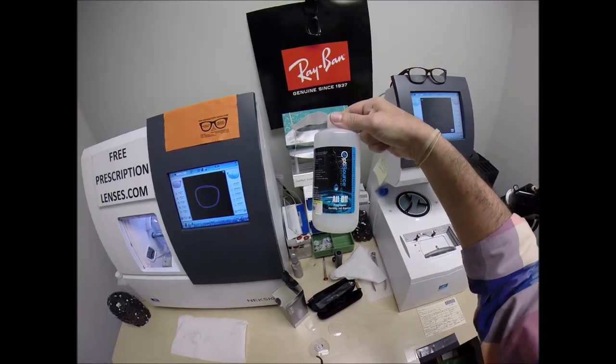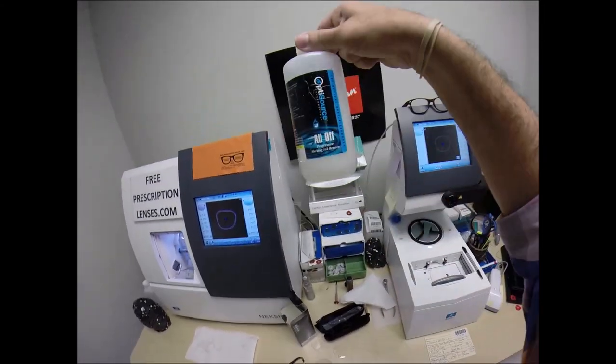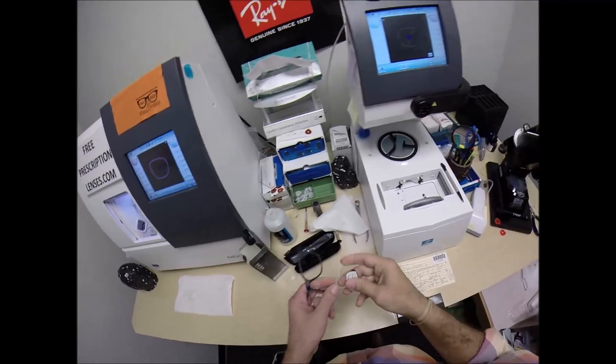Just because a whole bunch of people just don't buy it. So again, everyone go out, flood the market, and buy these, and drive the price down, would you? You see, I need to order some more. So hurry up and do that. So let's see if the lens fits.